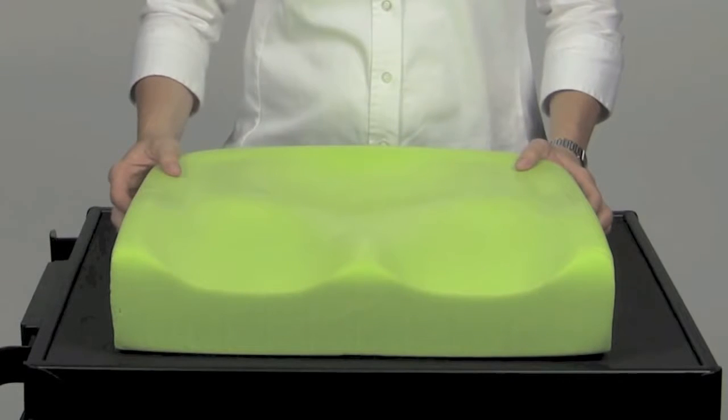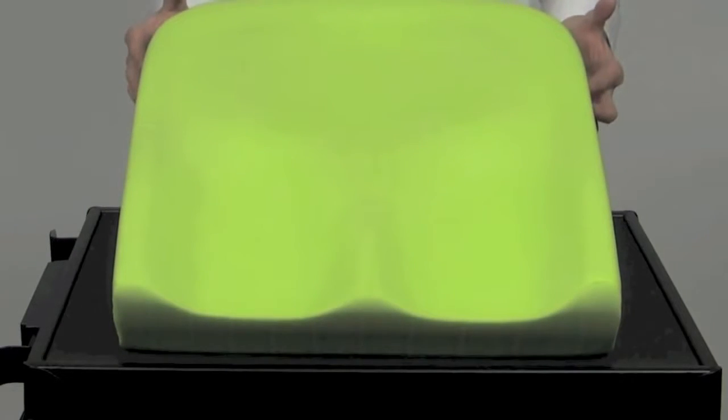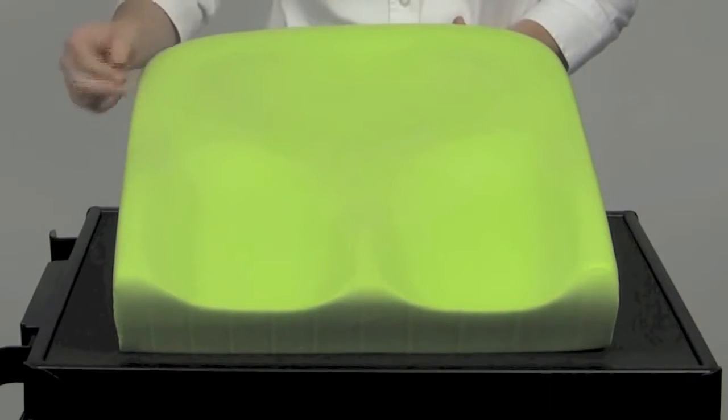The PS Cushion, a positioning cushion, is a single density, high resiliency foam cushion designed to provide superior positioning, stability and comfort. The molded, durable, high resilient foam prevents bottoming out.